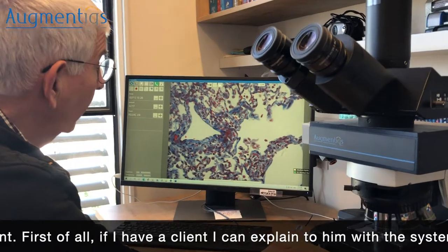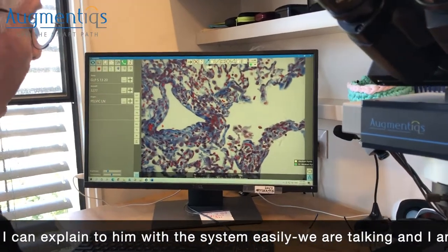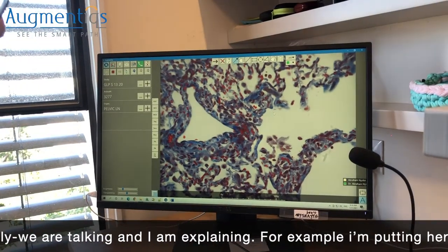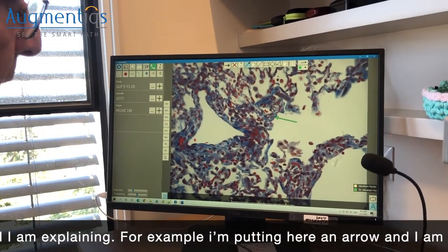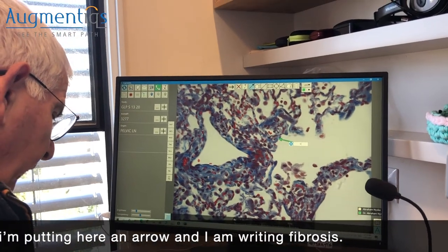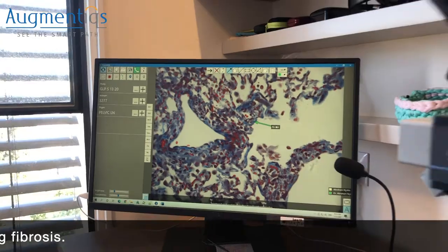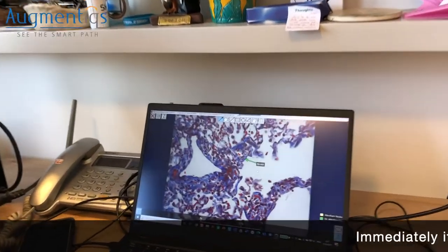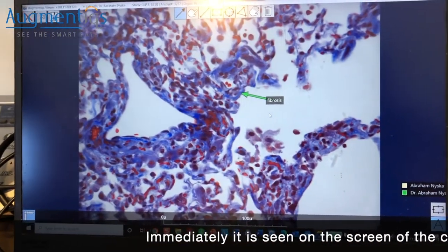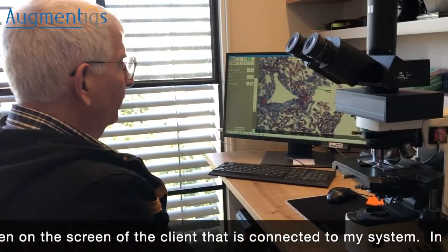If I have a client, I can explain findings to them easily with this system. We're talking, and I'm explaining — for example, I place an arrow here and write 'fibrosis,' and immediately it appears on the screen of the client connected to my system.